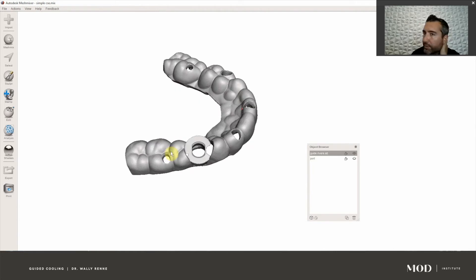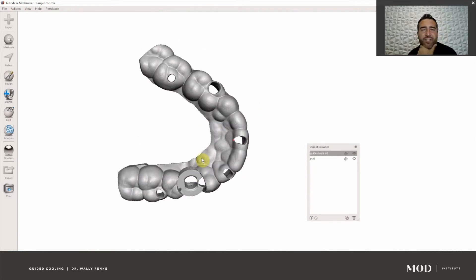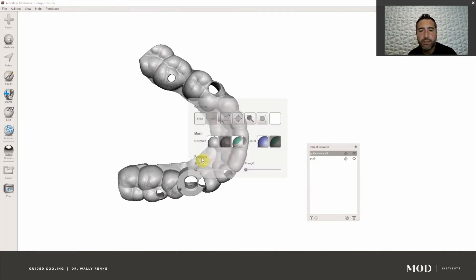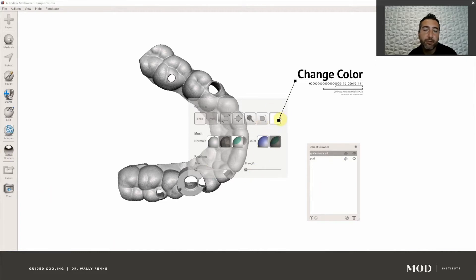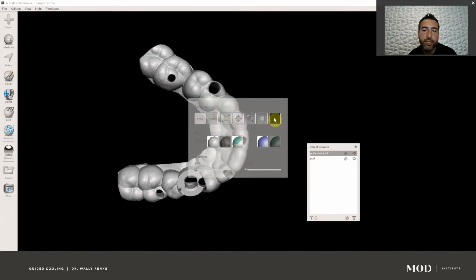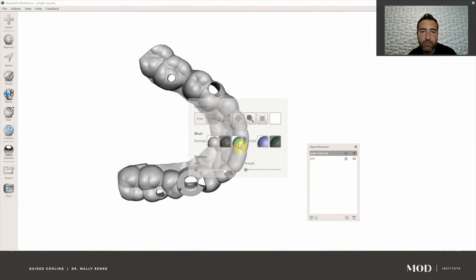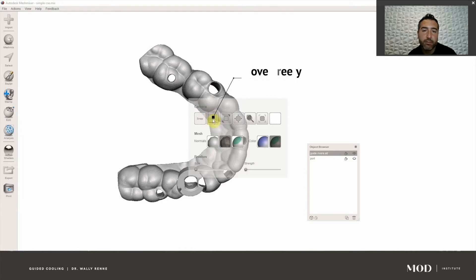The first thing is when you open up Mesh Mixer, which is a free software from Autodesk, you have to cater it to your liking. To do that, hold spacebar on the keyboard and you can change the color of the background. I like white, but click this square right here and you can change it to whatever you want. When you hold spacebar, make sure 'free' is highlighted — you'll know it's highlighted if it's a darker gray, so not 'snap' but 'free'.